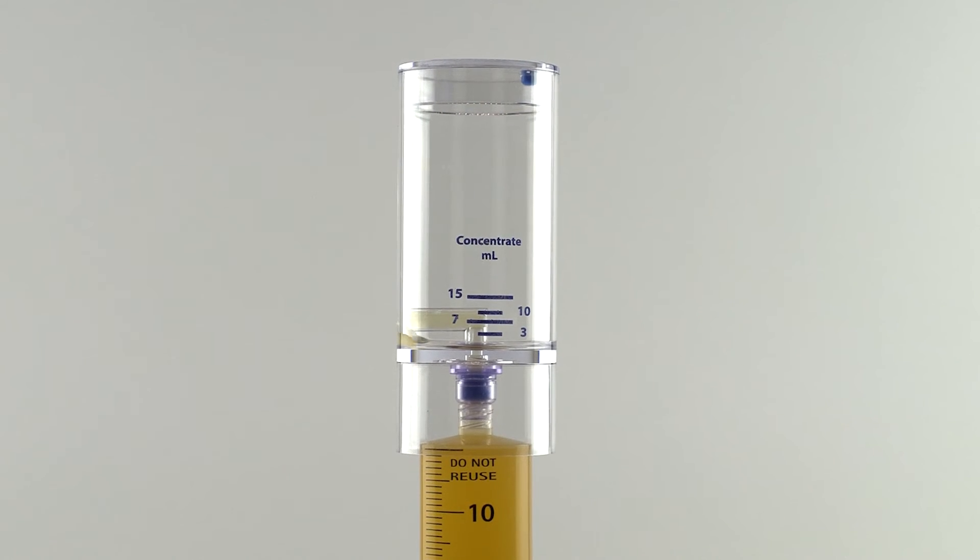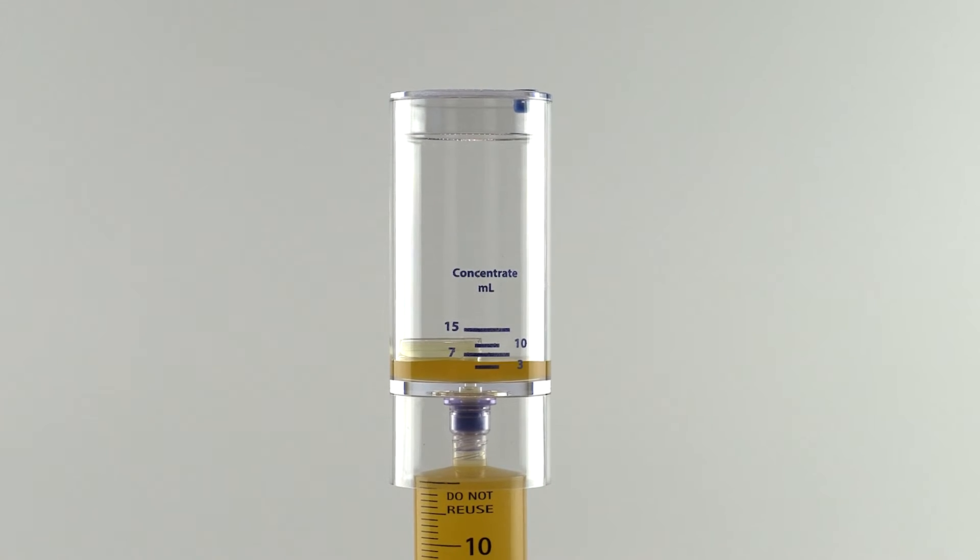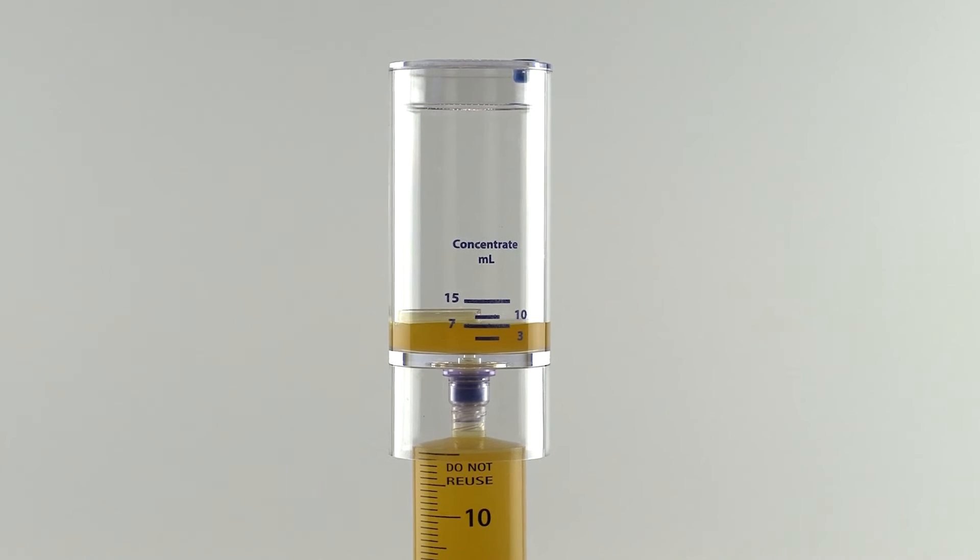While holding the concentrator device in an upright position, transfer the platelet plasma suspension through the bottom port.